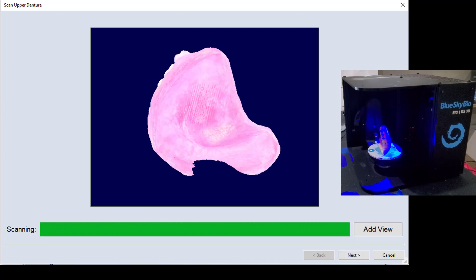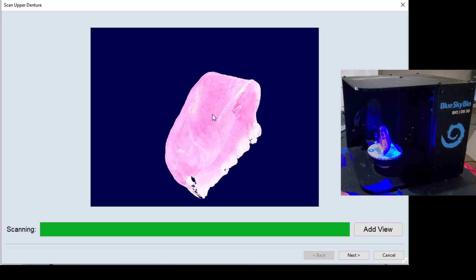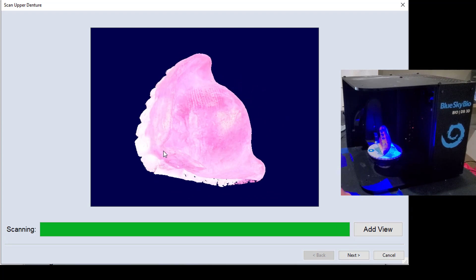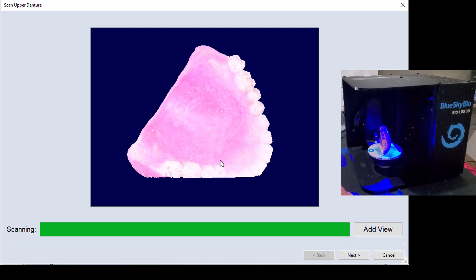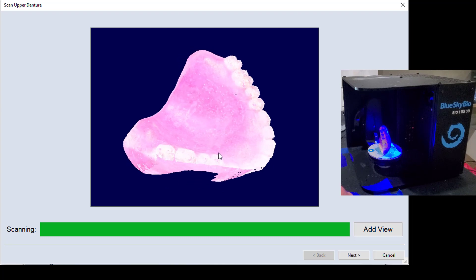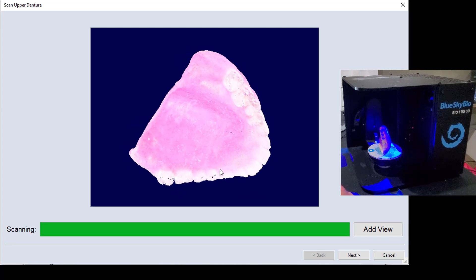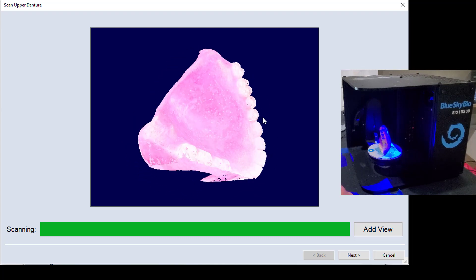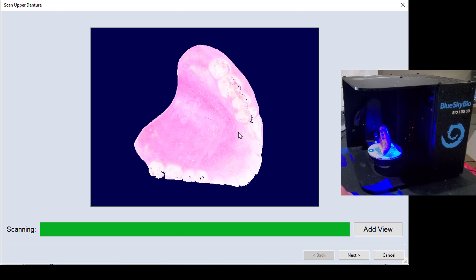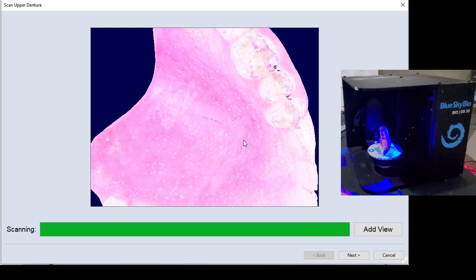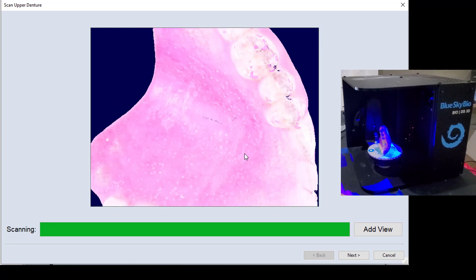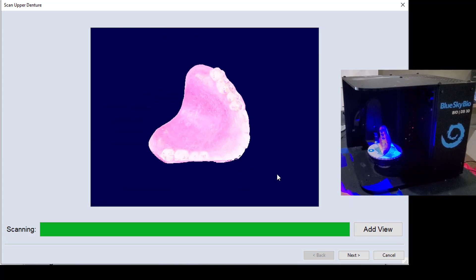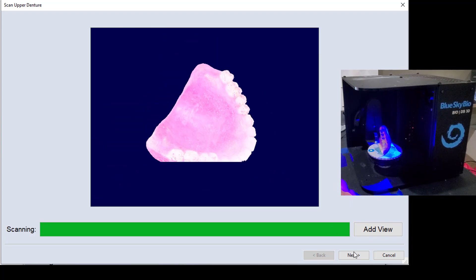Okay, you can see that it has finished the first half of the scanning, and so we can look at this and take a good look at all the areas that were able to be scanned. And since this is just going to be a duplicate, I'm not terribly concerned about filling in those tiny little holes. That should be perfectly sufficient.